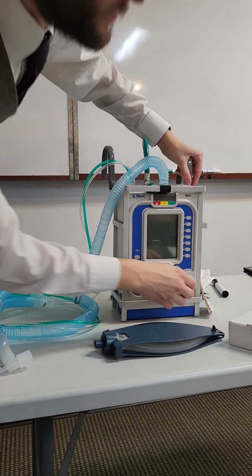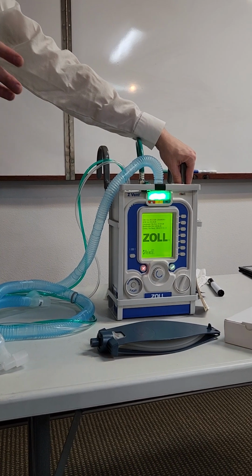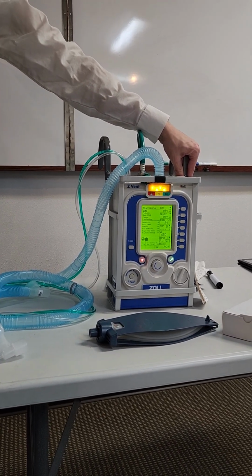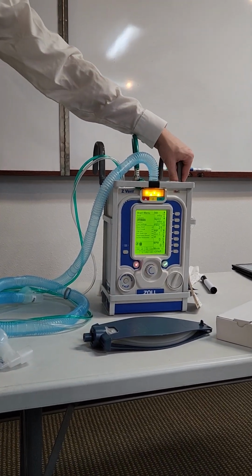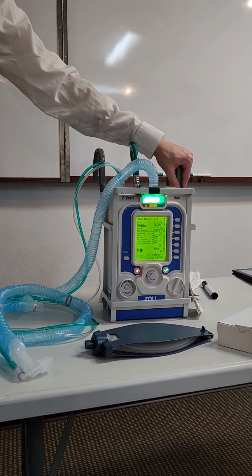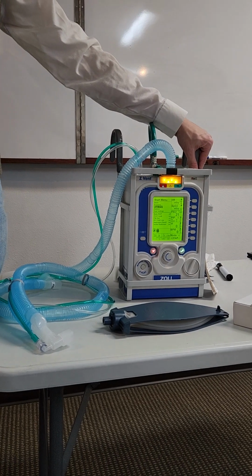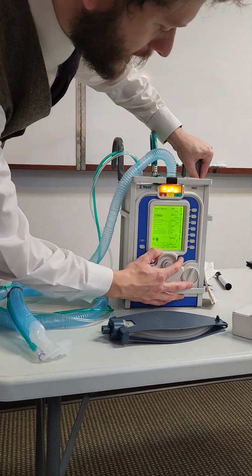Oh. Okay. So if you had that patient kicked into the apnea alarm, that apnea alarm would go away with that patient breathing for themselves for, I think it's like a couple minutes. It goes away, but it does take time, because obviously the vent's freaked out because they weren't breathing. That apnea alarm came up, which is considered like a major alarm. So at that point, it has to be a time-based thing. The patient has to prove that they're breathing on their own enough.